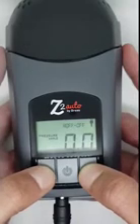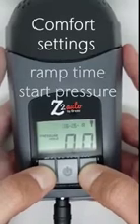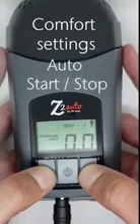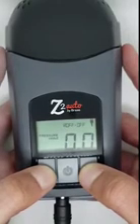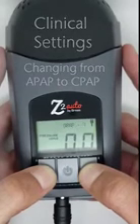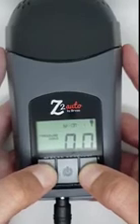The patient comfort settings include setting a ramp time and start pressure, changing the Z-breathe setting, and changing the auto start-stop feature. The steps for changing the patient comfort settings are the same for an auto or base CPAP device. First, I will go over the clinical settings, starting with changing from APAP to CPAP mode on an auto device. An auto device can be used as an auto-adjusting CPAP or fixed pressure CPAP.